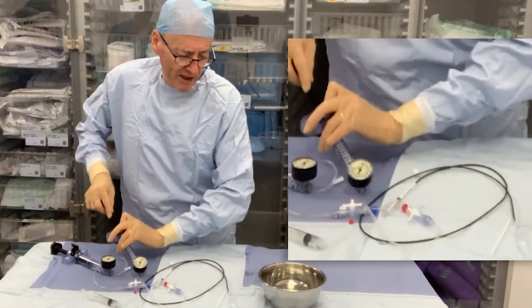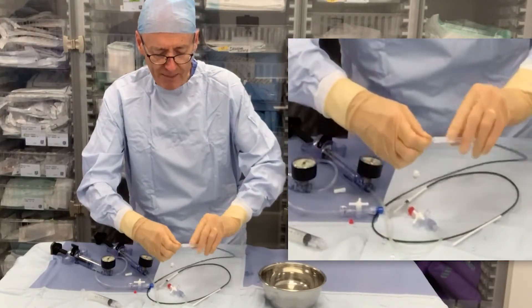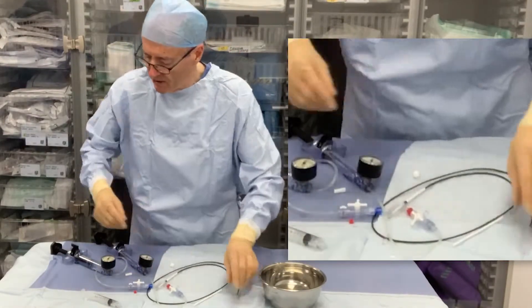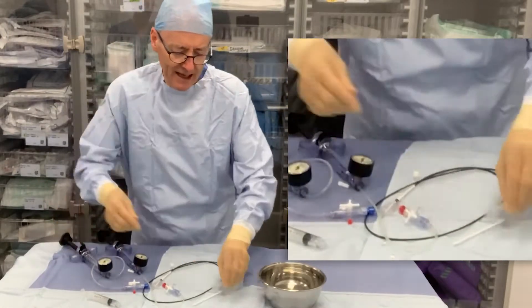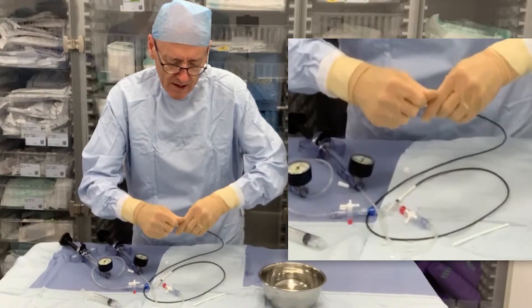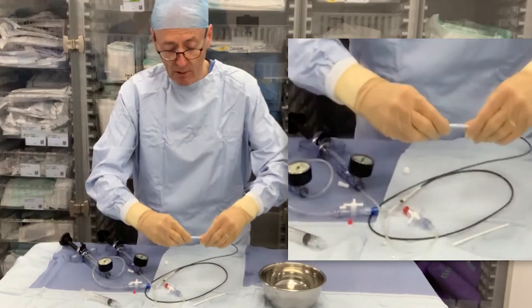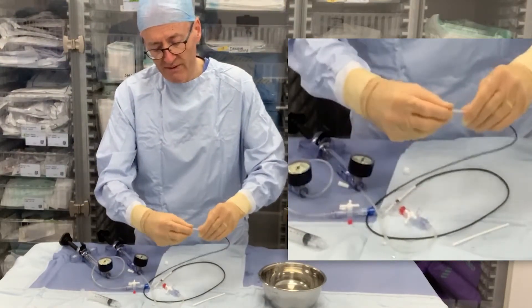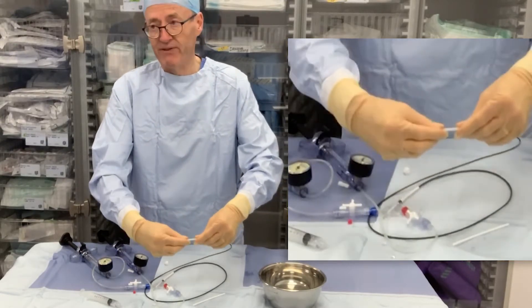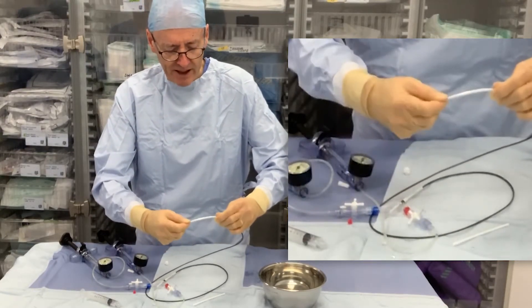When you're doing all these balloons, often if you want to get the refold, a little bit of tension on the plastic — not on the sharp, but on the plastic — will often get you a good refold. You can see we just have the inner balloon inflated here, and here we are pulling again just to get it back down. So that's a reasonable refold — not a perfect refold, and you can work on that. But it turns out that this sort of out-of-plane refold is actually a good setup for crimping a stent on, because it's roughened up the balloon and left some fluid inside — it makes for a much better stent crimp.